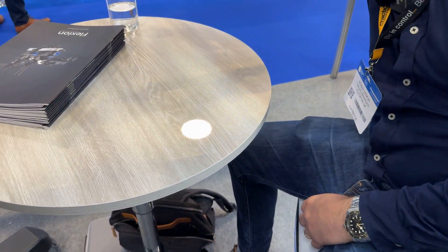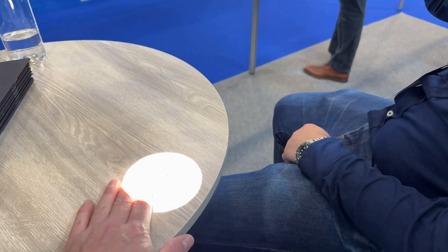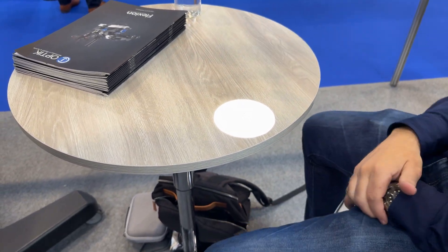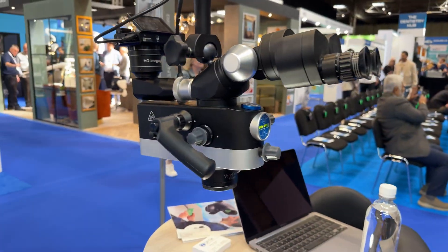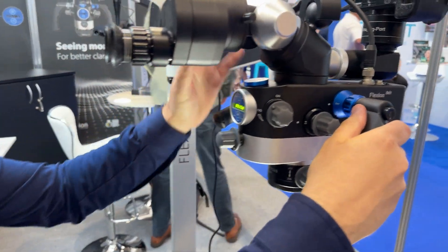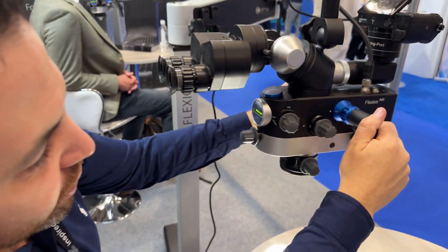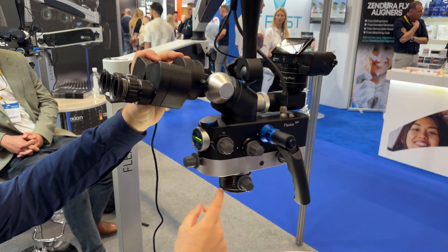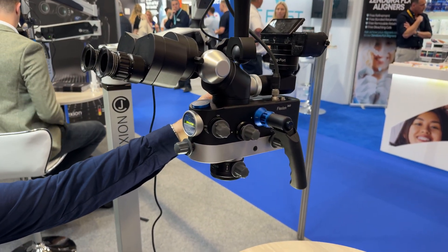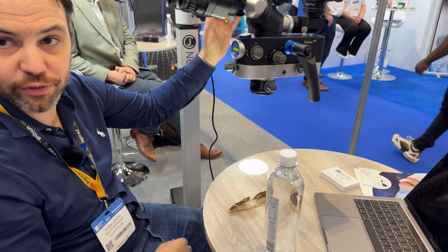We're at the brightest now. If we go on to the twin white you'd get another boost - this is the twin blue which doesn't have that function but the twin white does. What's the difference? You're just choosing twin blue or twin white - the rest of the microscope is exactly the same. This one has an older vario on it - the 350. But as standard now, unless someone specifies otherwise, we send it with a 500 vario.